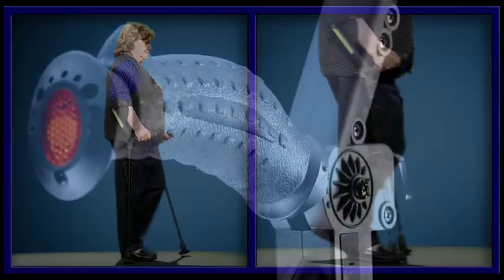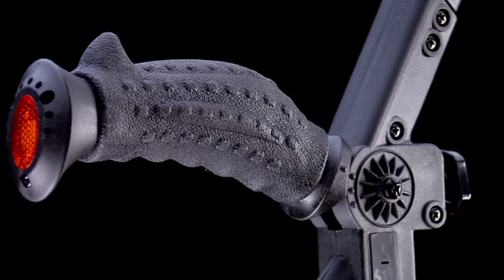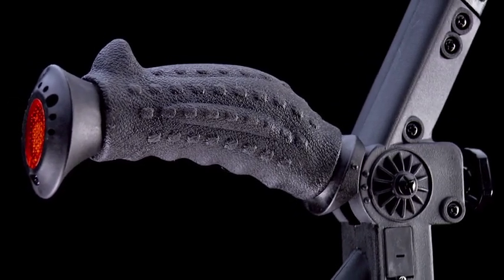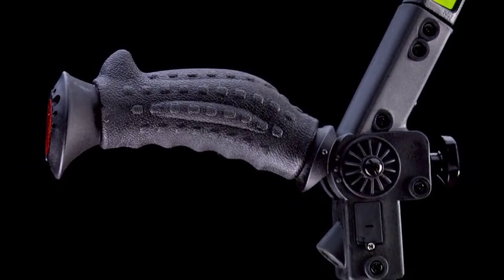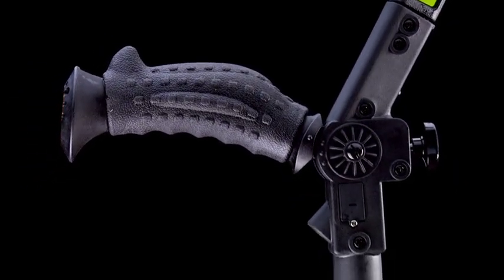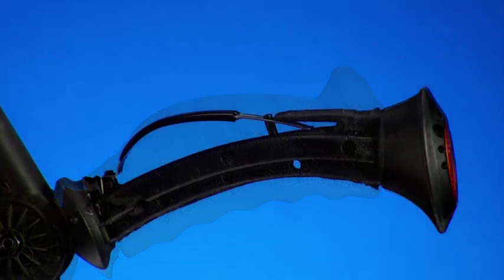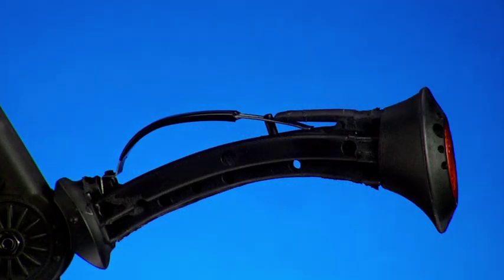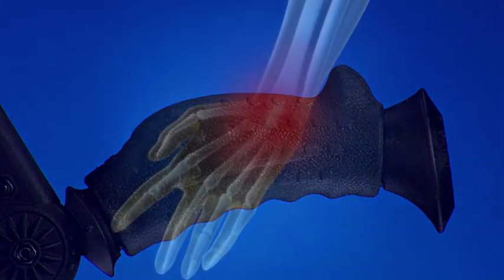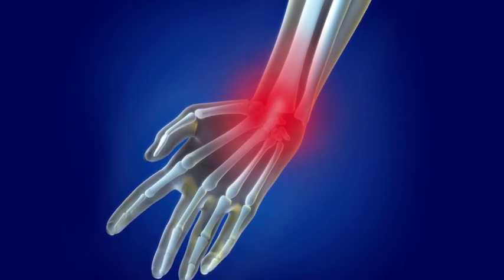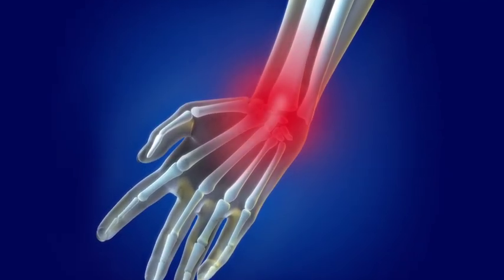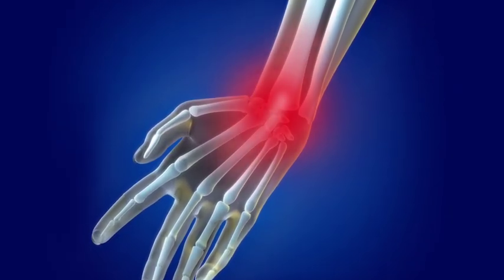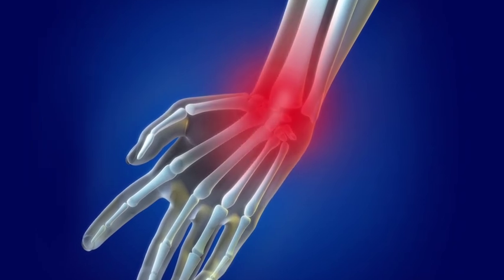Another essential piece of this equipment is its handle, which contributes to the third anti-impact mechanism. An internal steel strip eliminates the impact on the elbow, hand, and wrist structures, reducing or eliminating the painful inflammation or injury such as that of the carpal tunnel syndrome.